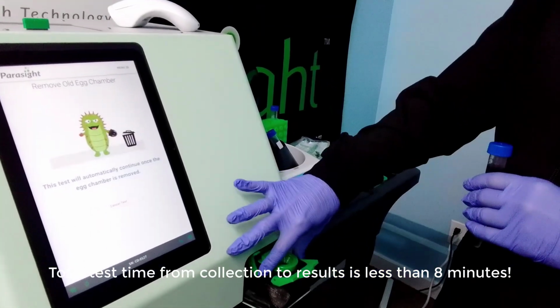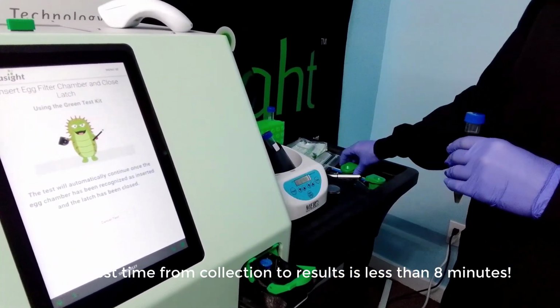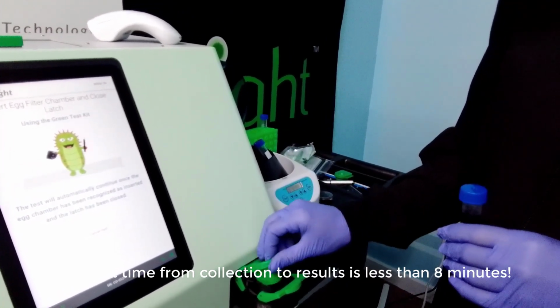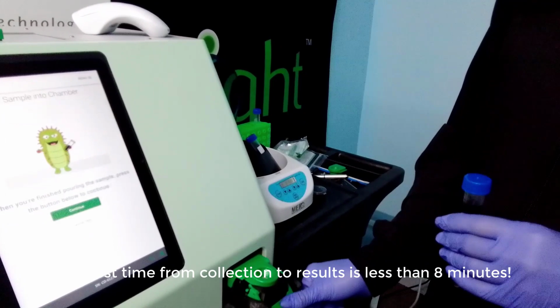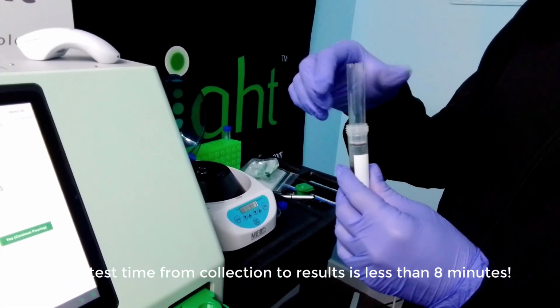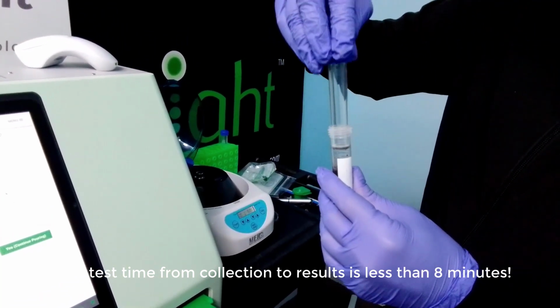Remove the existing egg chamber when prompted and then insert a new egg chamber. Remove the cap from the vial and insert the sample filter as shown. Attach the cap securely.